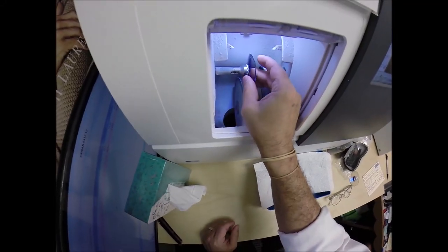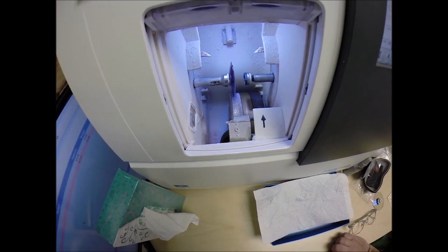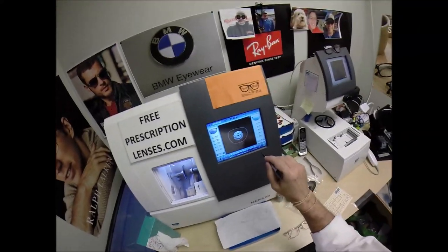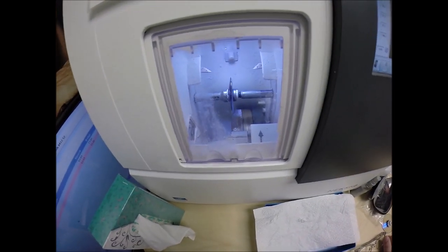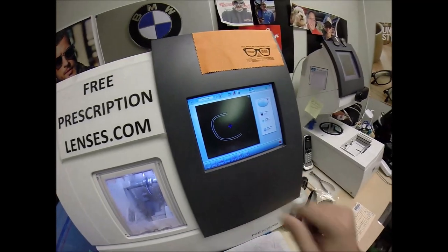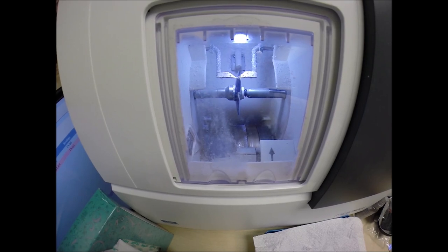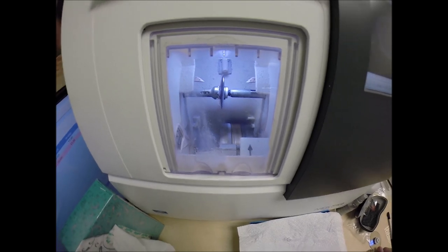I'm going to put the magnet into the chuck — or as I like to call it, the Charles, because I don't know this machine well enough to call it chuck. Hit the start button. The door closes, the clamp shuts. The lens will be traced by the two white styluses, making sure that it's large enough to fit into the frame. You can see this is tracing the shape of the right lens.